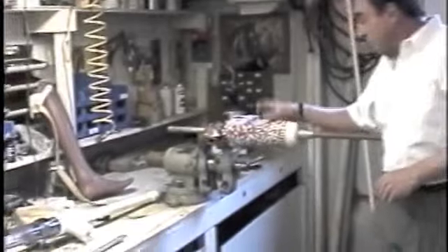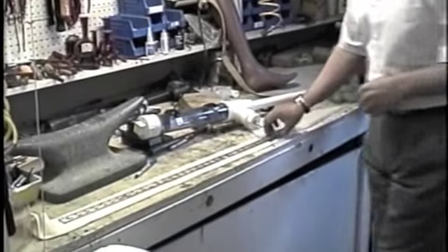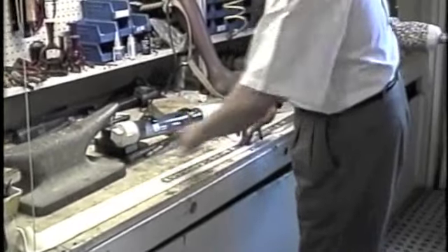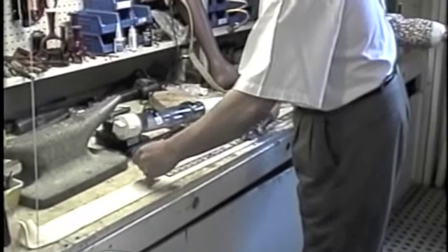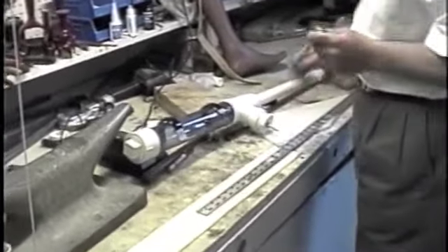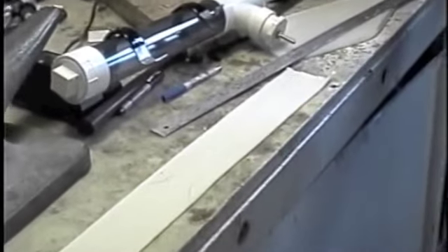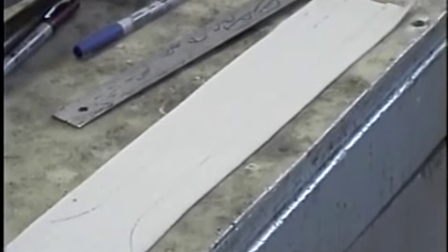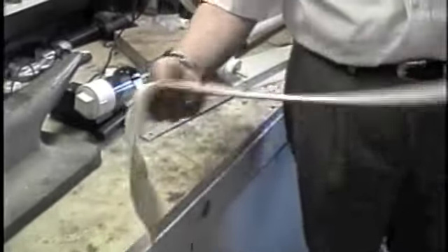This model is a little bit larger on the proximal side, so in this case we have to use 3-inch cotton stockinette and trim it down. We'll take a yardstick, figure out how much you're going to want for your pylon area, stitch it down, and trim off the excess. For smaller models you can use 2-inch cotton stockinette without trimming because it's small enough to fit over the mandrel without wrinkles. When you have a larger model, you trim the stockinette and stitch it up.